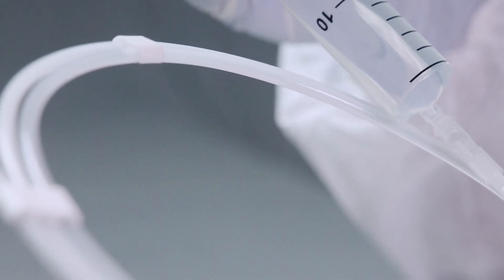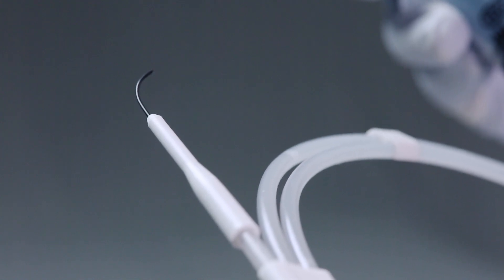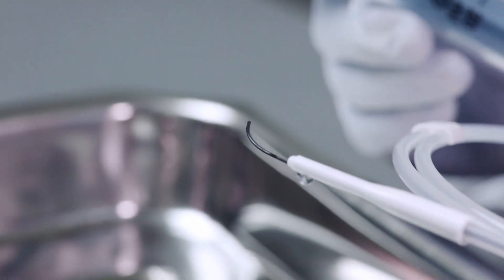Inject the saline into the dispenser such that the entire length of the wire is activated. Insert more solution if the wire removal is not easy.